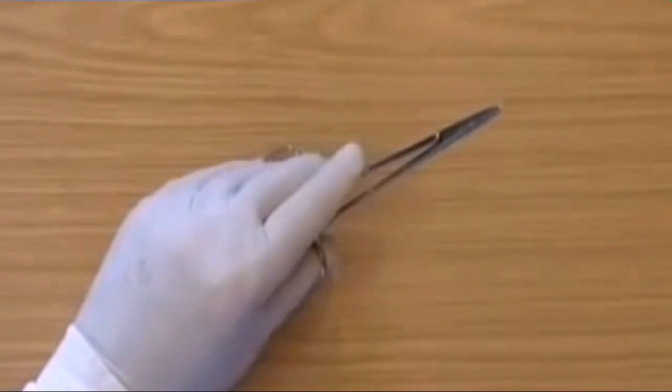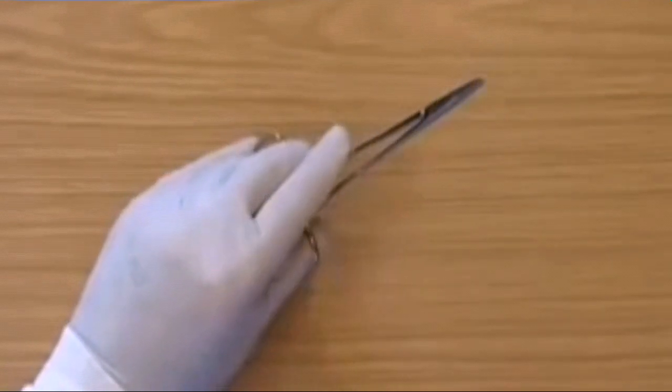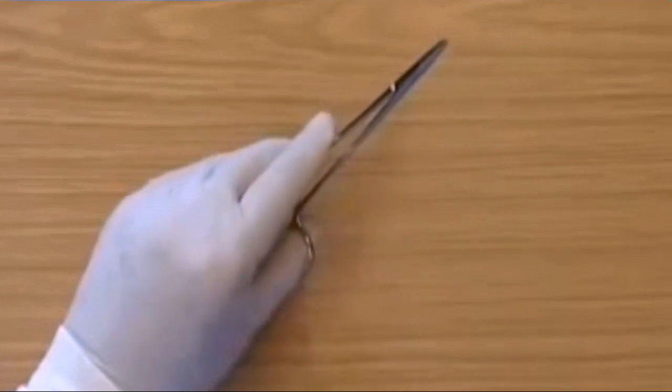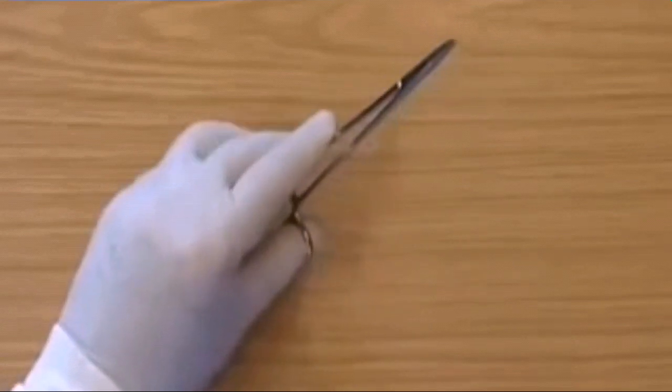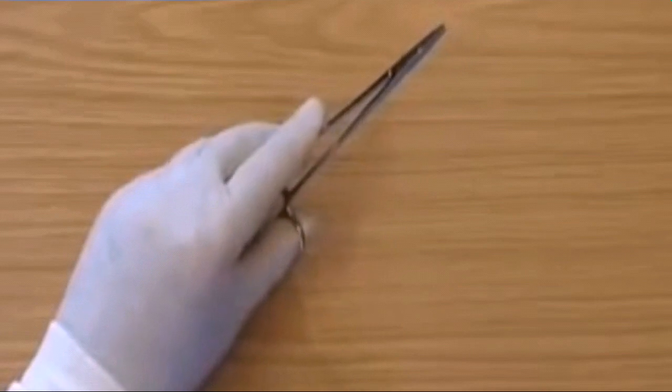This is practice locking and unlocking left handed. You have to pull with the thumb and push with the finger to lock and unlock them.